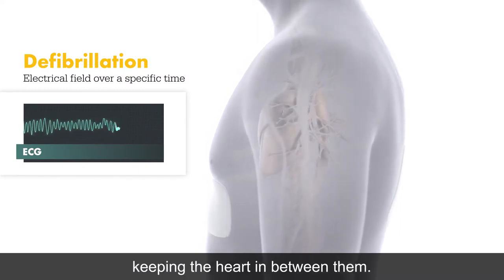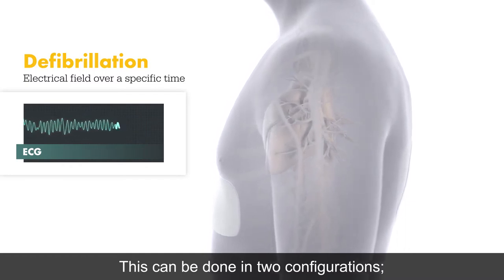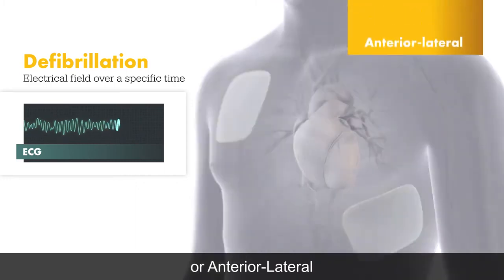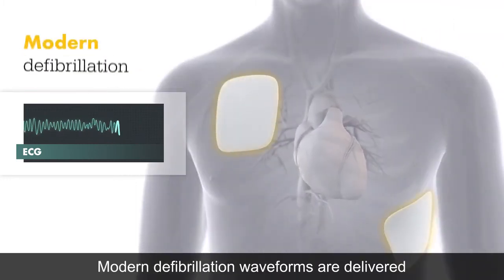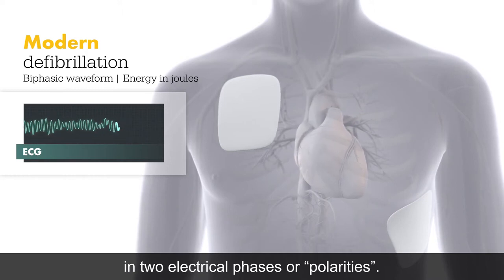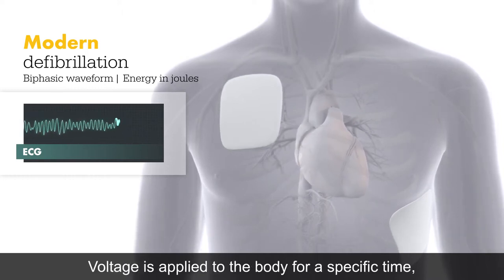Defibrillation pads are placed on the chest, keeping the heart between them. This can be done in two configurations: anterior-posterior or anterior-lateral. Modern defibrillation waveforms are delivered in two electrical phases or polarities.